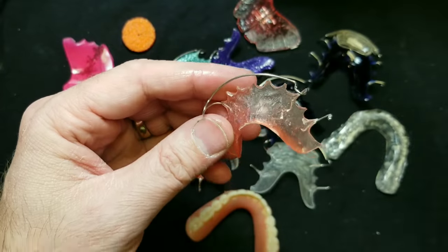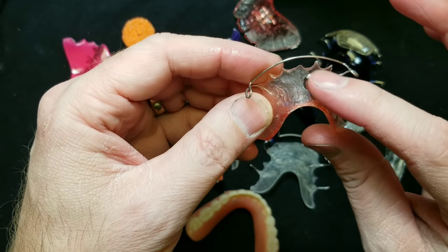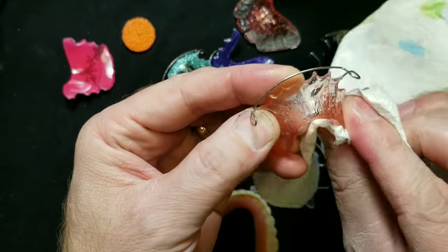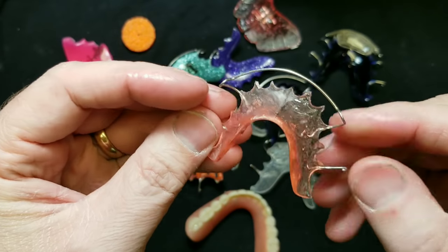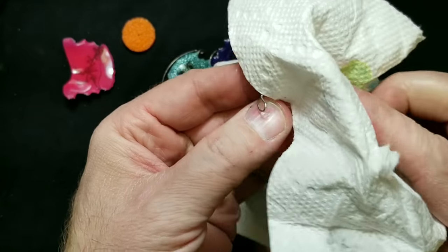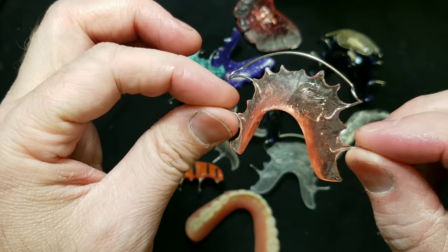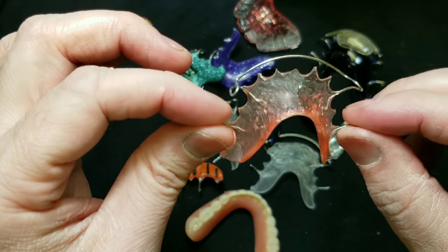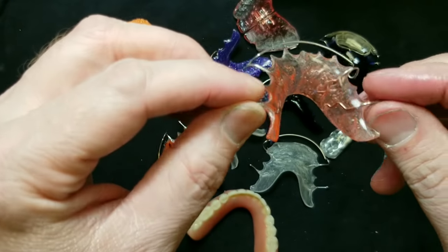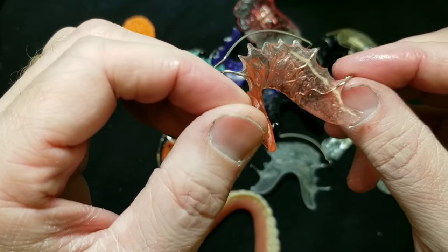Pink retainers — it looks great. I'll do one side. Wipe it clean. And a little more dryer. I hope you can see what this looks like on a dark background. In my videos I was using a different background. One side is like crystal clear and the other side is kind of foggy.